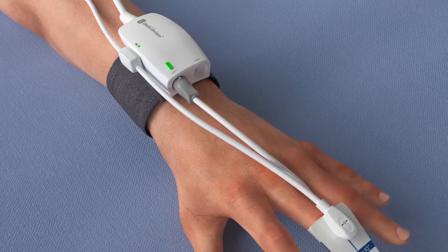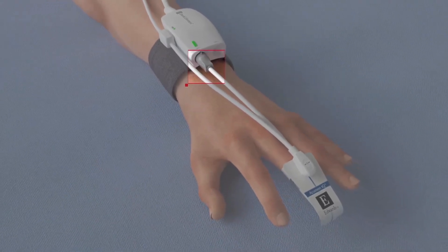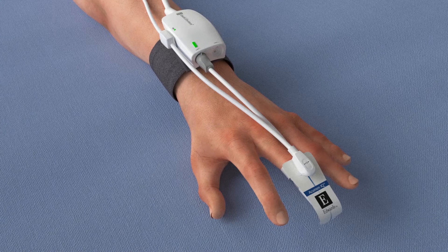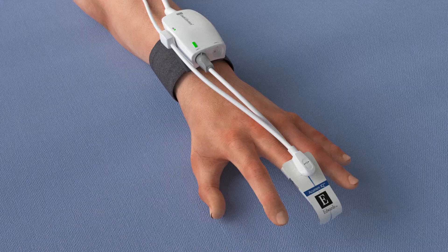Connect the AcumenIQ Finger Cuff to the system by plugging the AcumenIQ Finger Cuff connector into the pressure controller. Refer to the AcumenIQ Finger Cuff IFU for more details for setup.